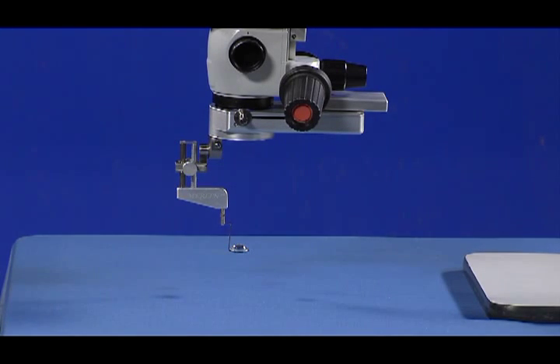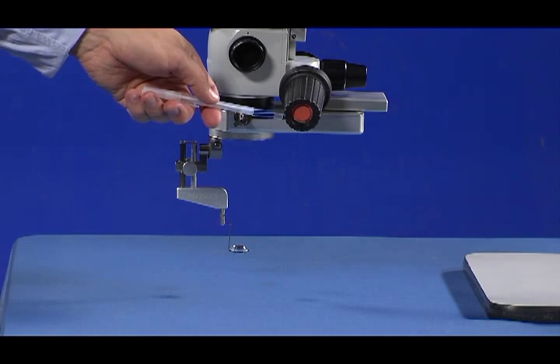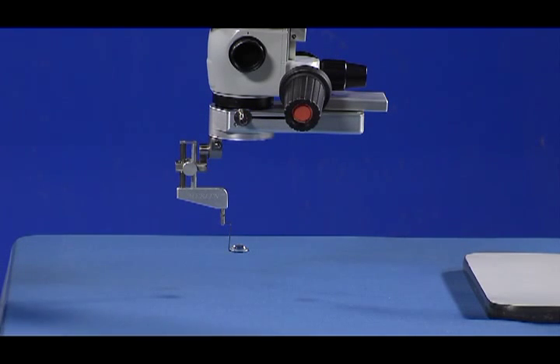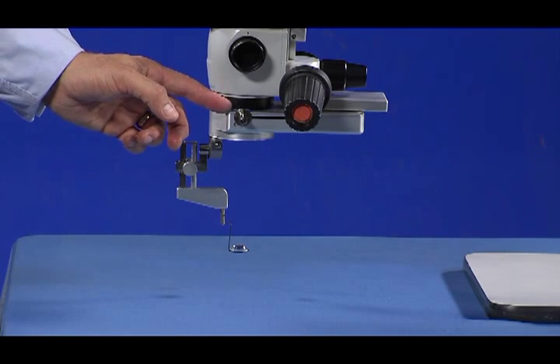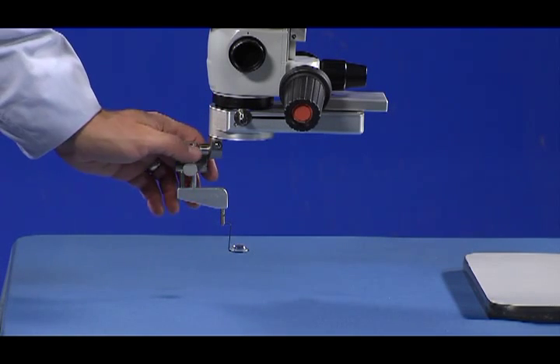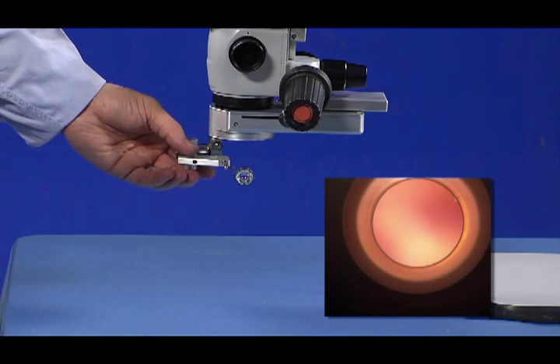As indicated by its name, the CLA includes a condensing lens that moves horizontally within the CLA housing. The condensing lens is positioned below the microscope objective lens when viewing the retina. The condensing lens is retracted from below the microscope objective lens when viewing the cornea and exterior of the eye.